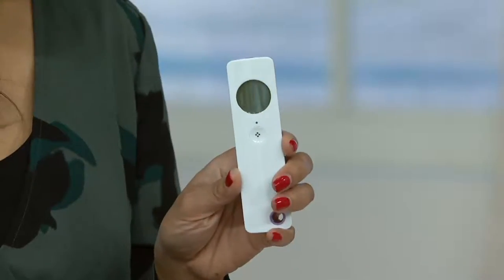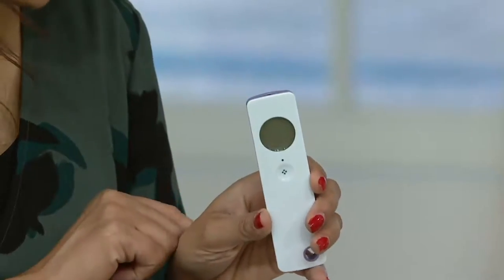V32974 — I think this is a great gift idea for any family because this is going to be great for parents to use with their kids and on themselves. And this gives you a quick, fast reading. This doesn't require you to sit there for two minutes and check the second hand as it goes around the dial. You press, you get your reading.